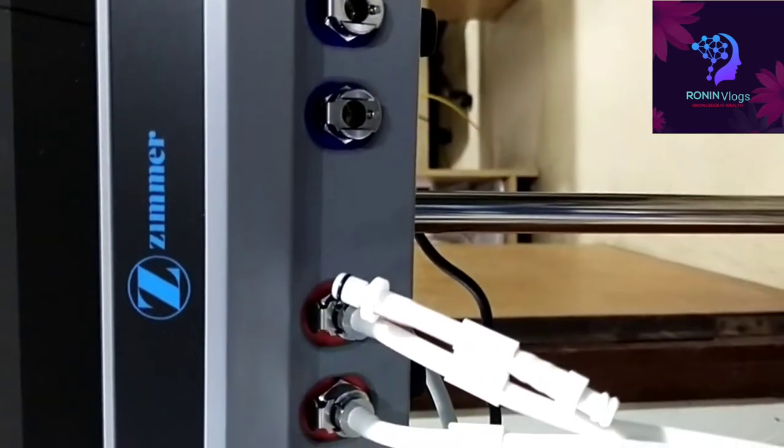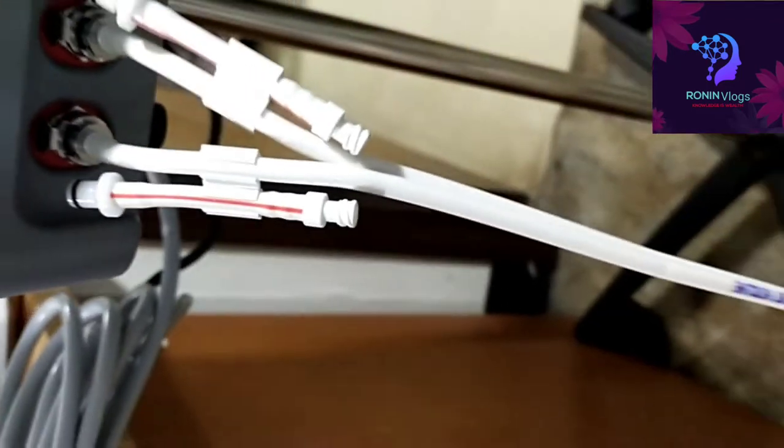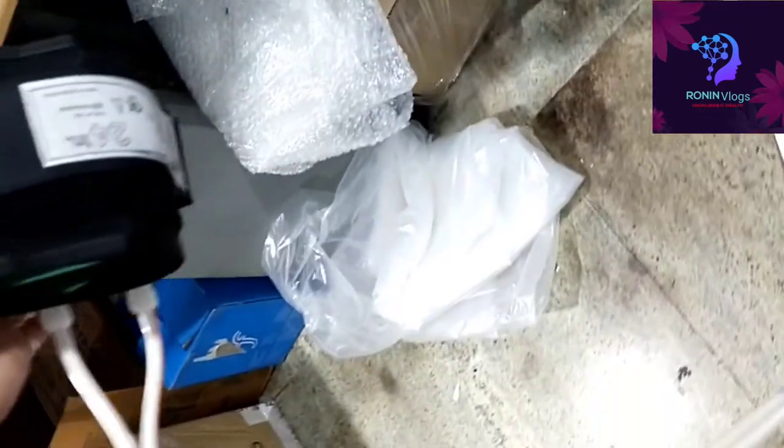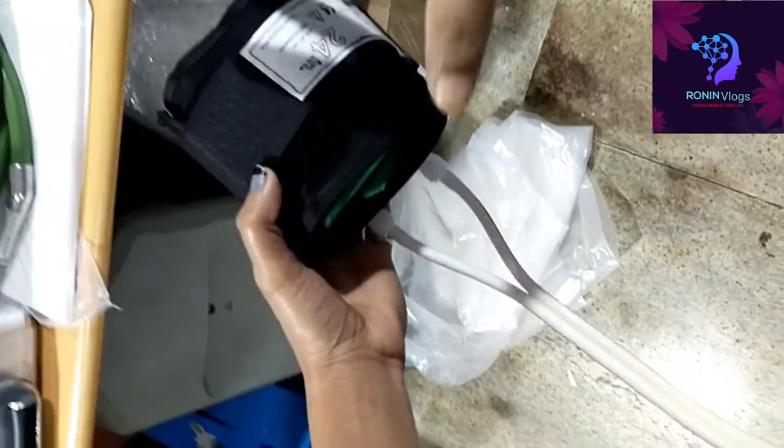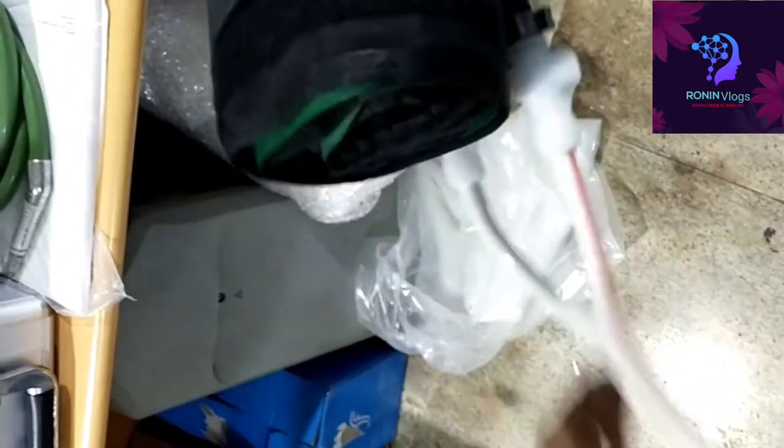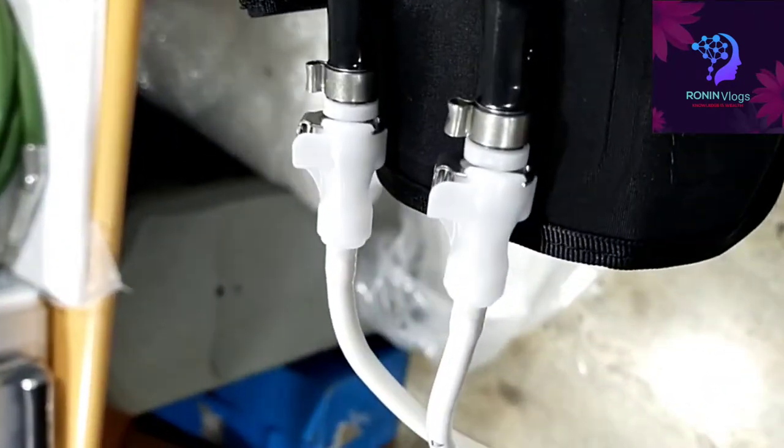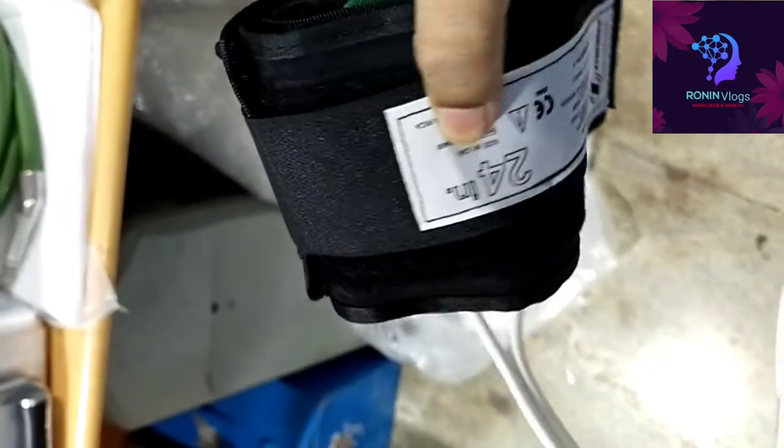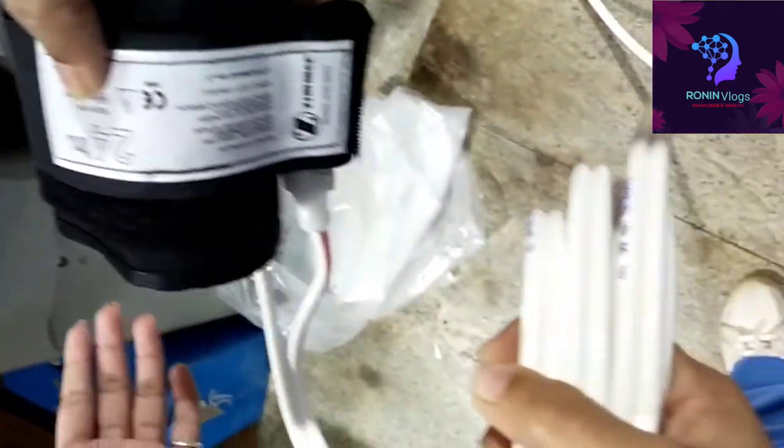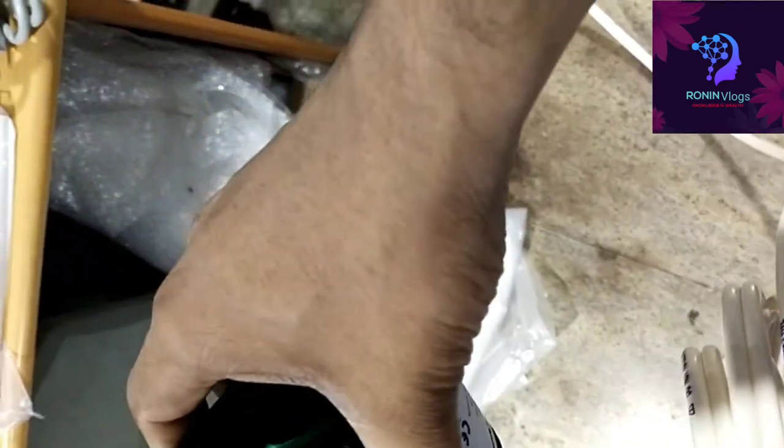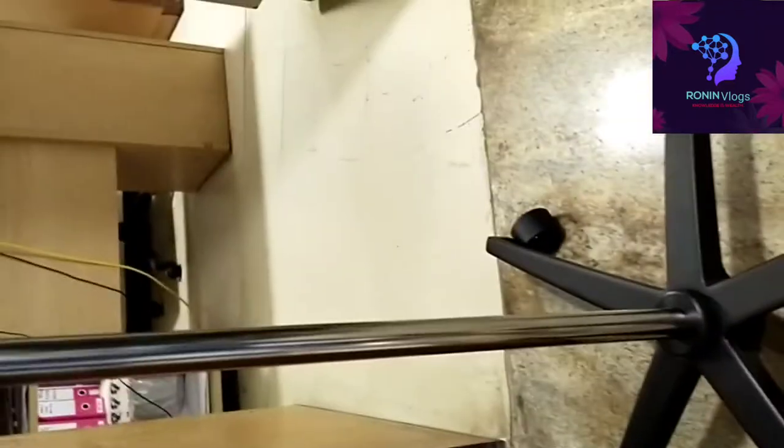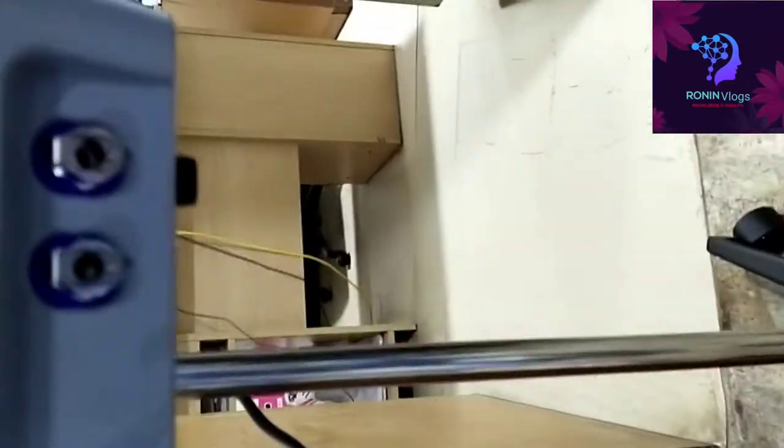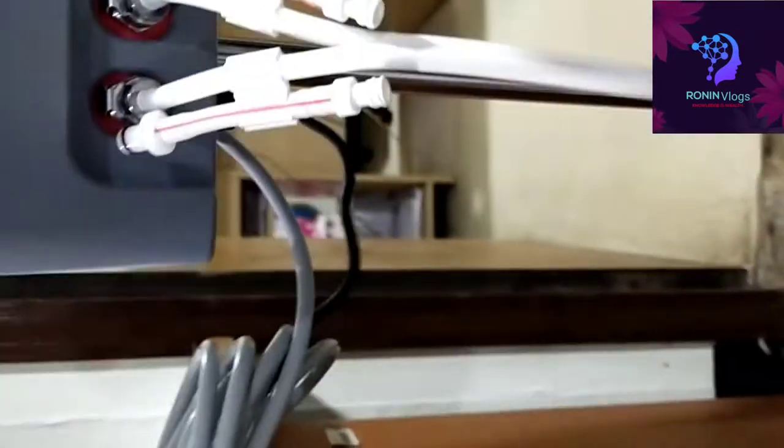This is the cuff. Each cuff consists of two tubes. One tube is red color and one is in blue color, easy for identification. Both we can use at the same time, that is a specialty.